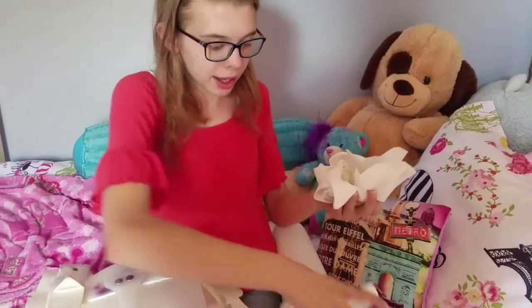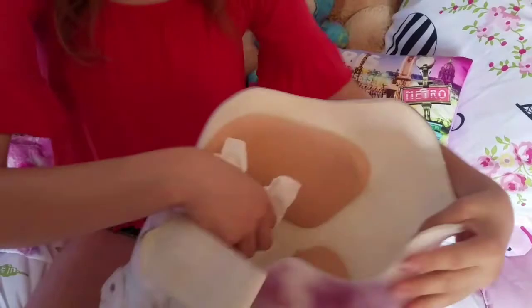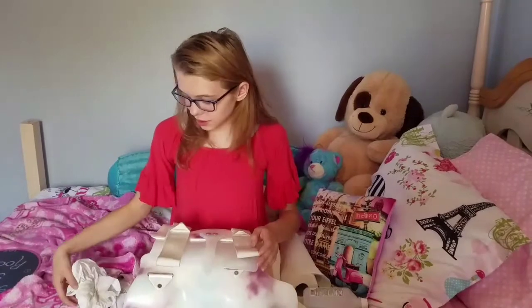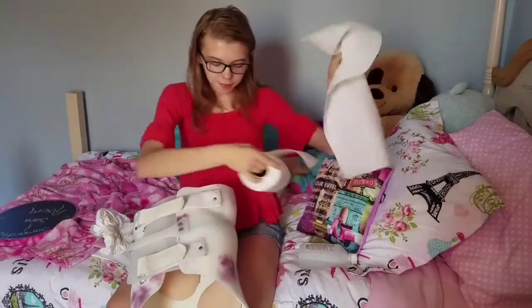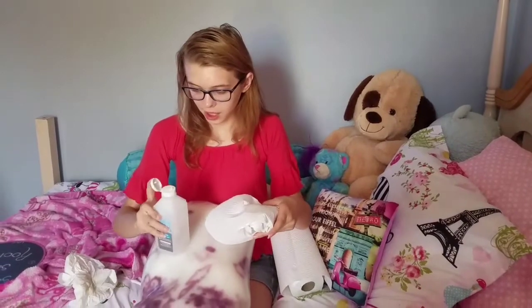You want to get a lot on there because braces are pretty big. Once you get past the smell it's pretty good. You just want to wipe all over it, and if you see over here there's a lot of dirt in this crack, really rub that all in. Also focus on the inside part — that's what's going to make the biggest difference — but you still want a clean outside too.